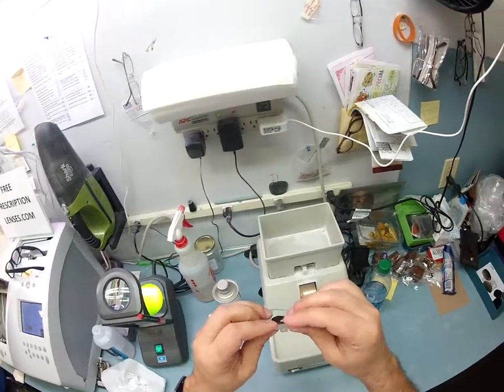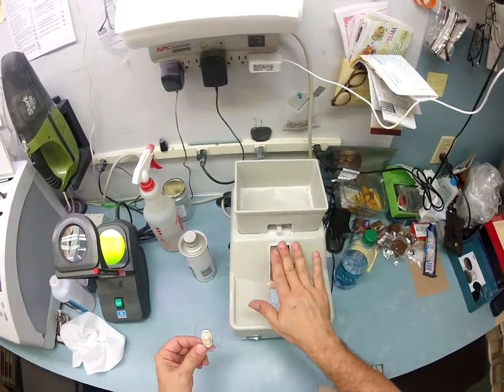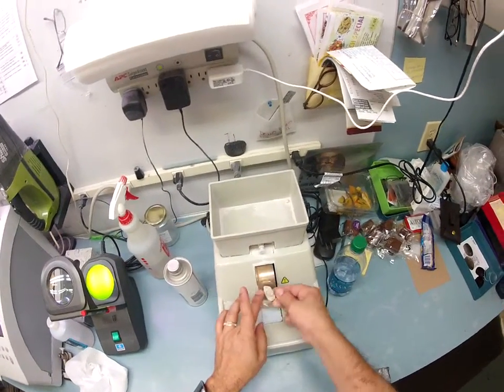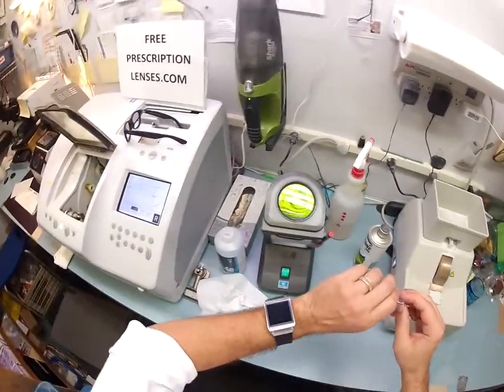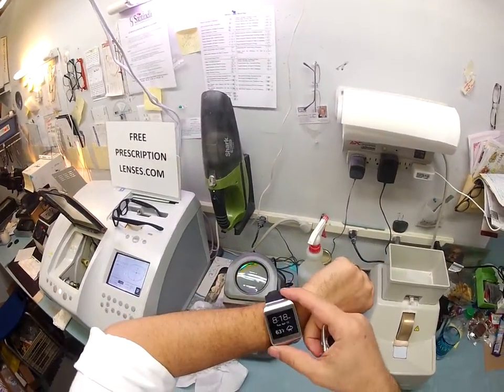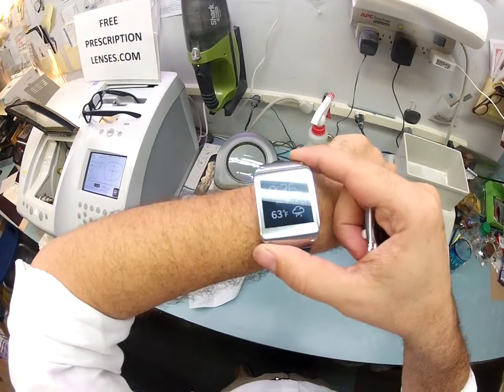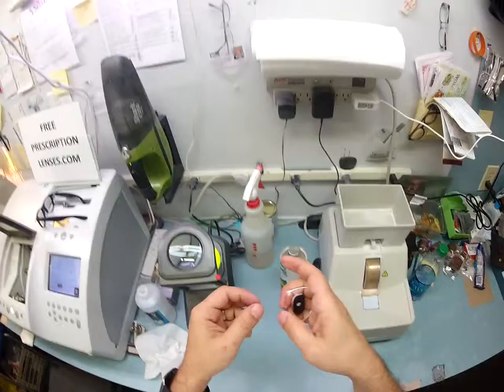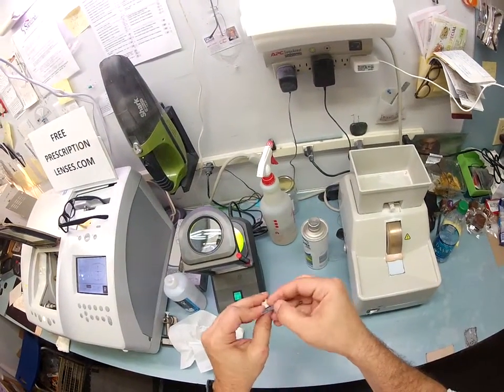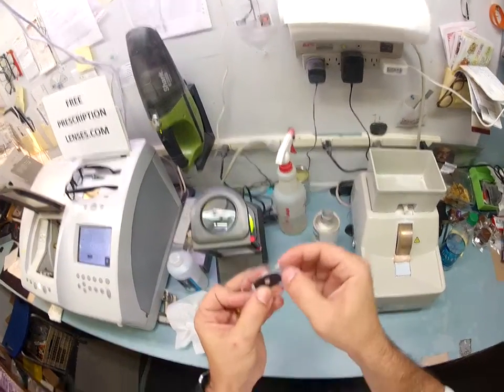You do have some rough edges on the edge of your lens — that's why they call them rough edges. I'm going to use my hand stone, which is completely flat. This is known as the safety bevel, where I smooth everything out. It is now 8:26 on Tuesday, April 15th, 63 degrees and raining in my hometown of Durham, North Carolina. This whole process will take about 15 minutes. I'm using my thumbnail to scrape away the schwarf — the white powdery substance.